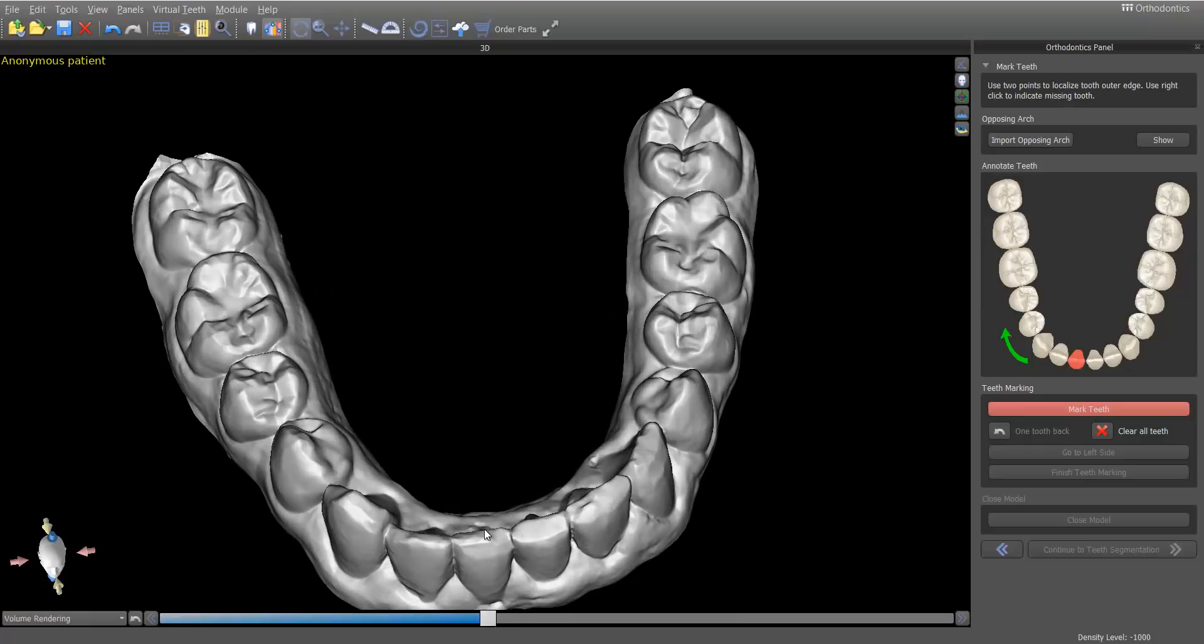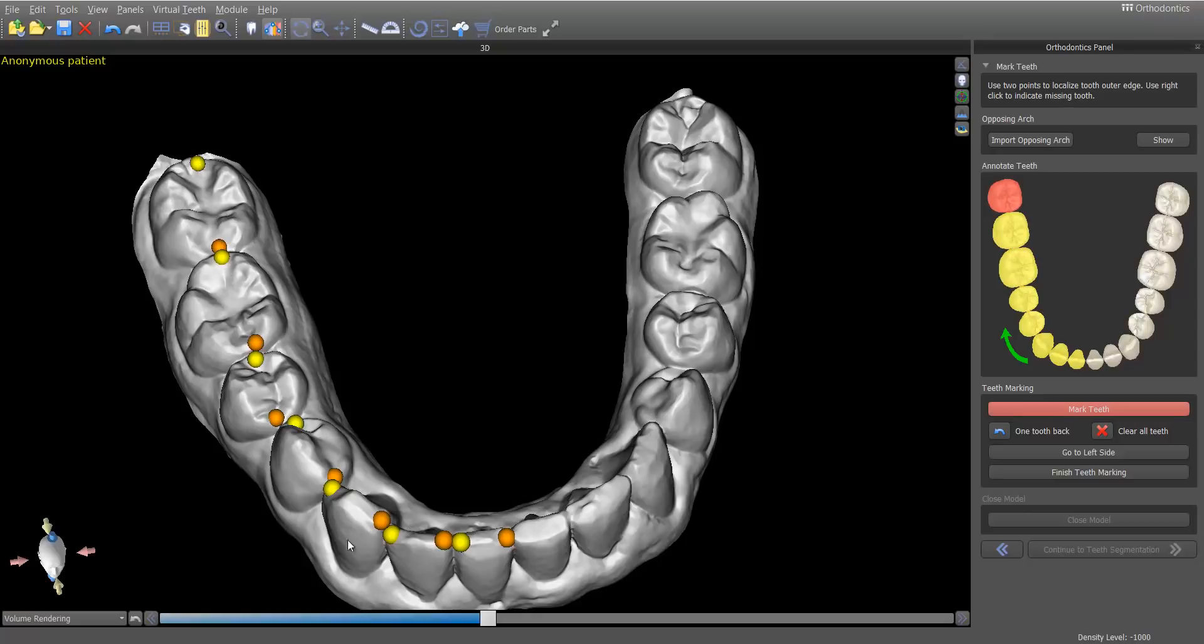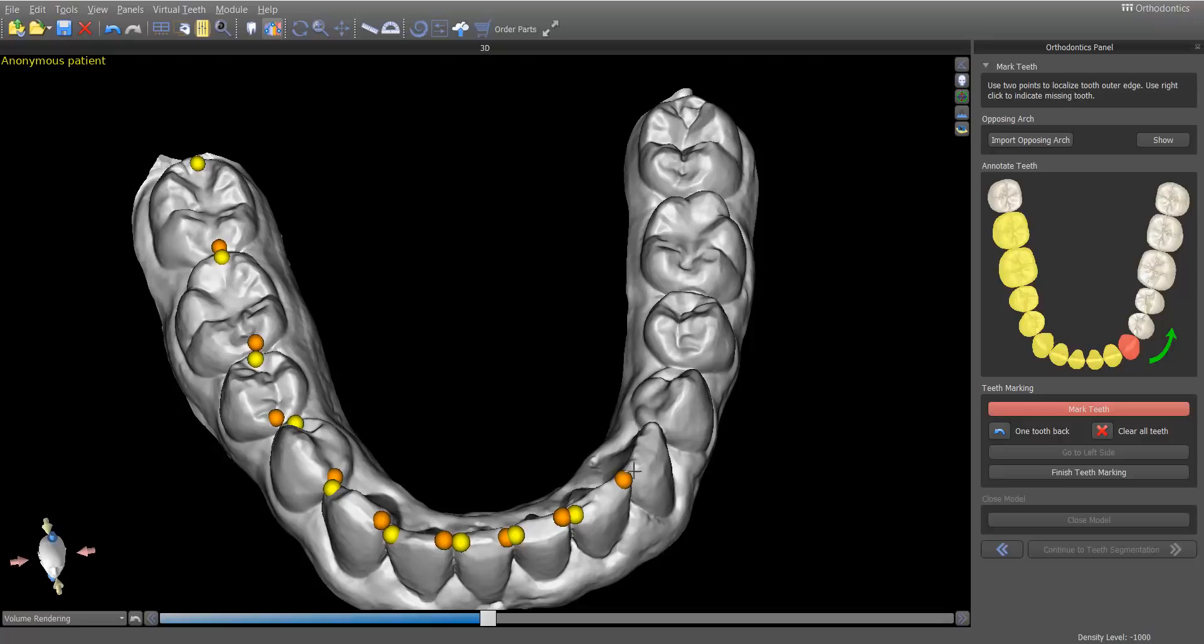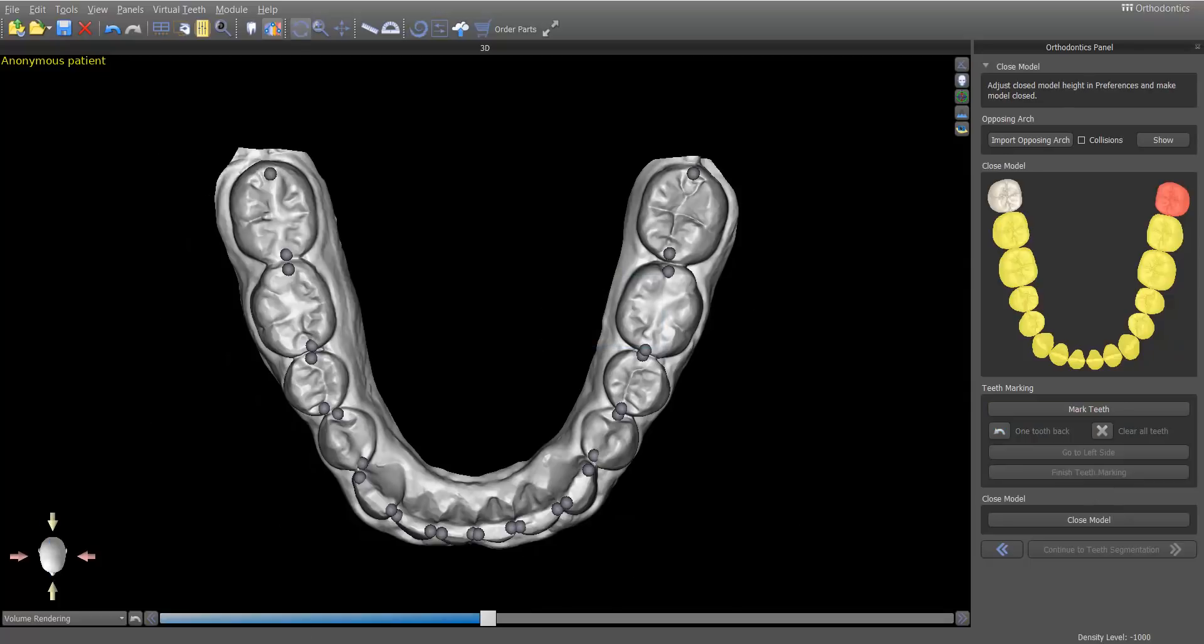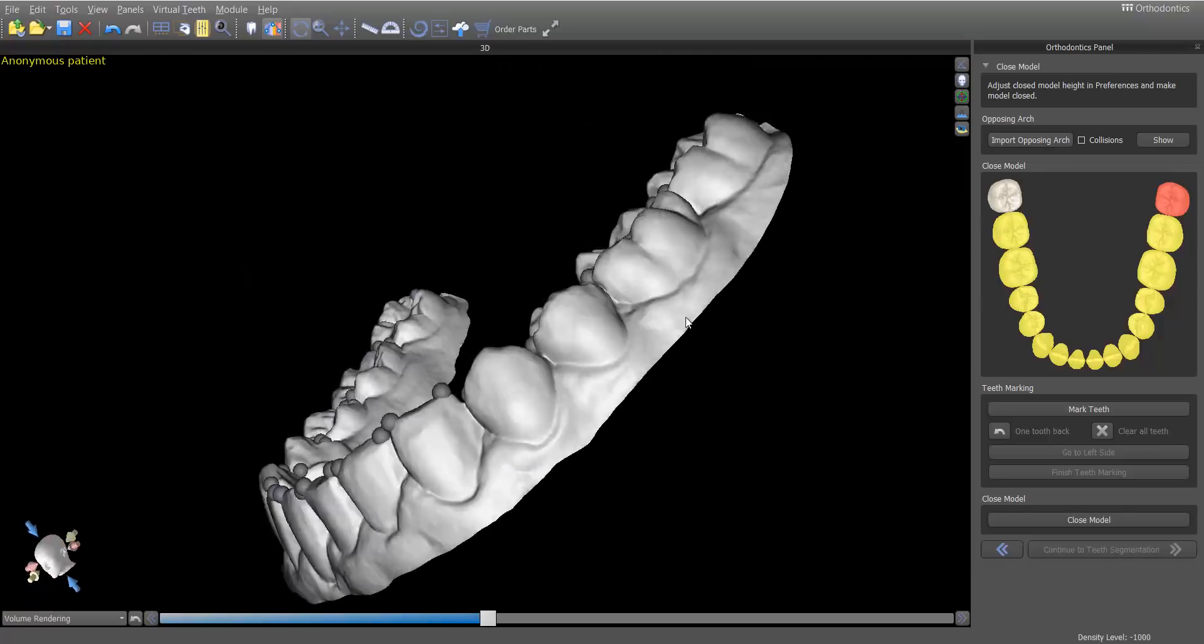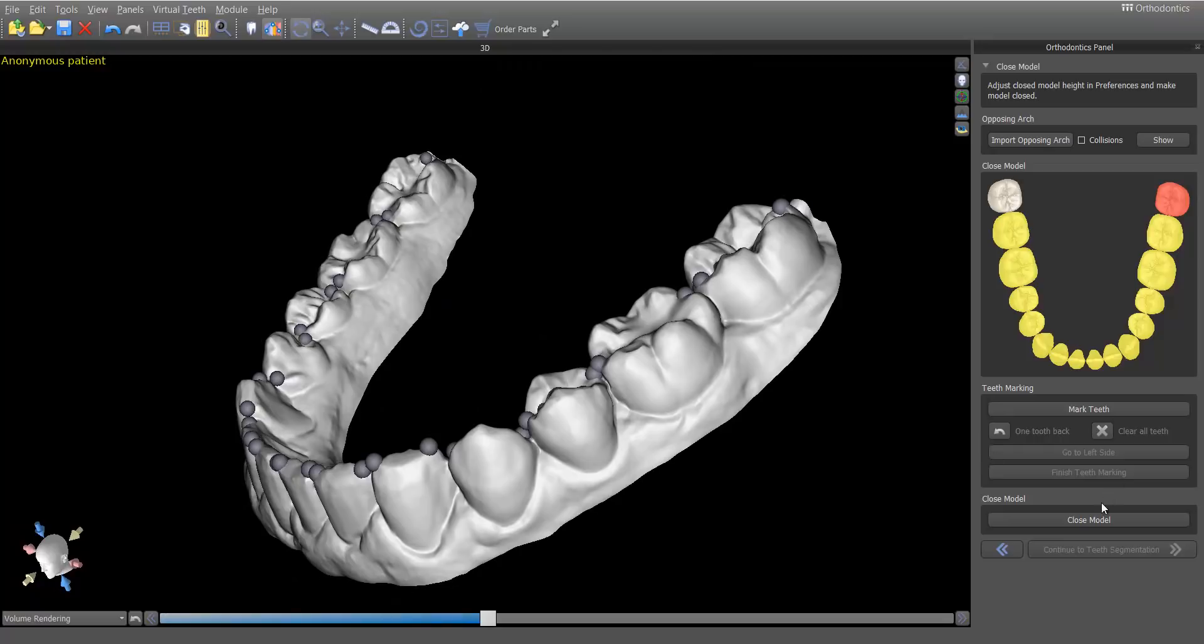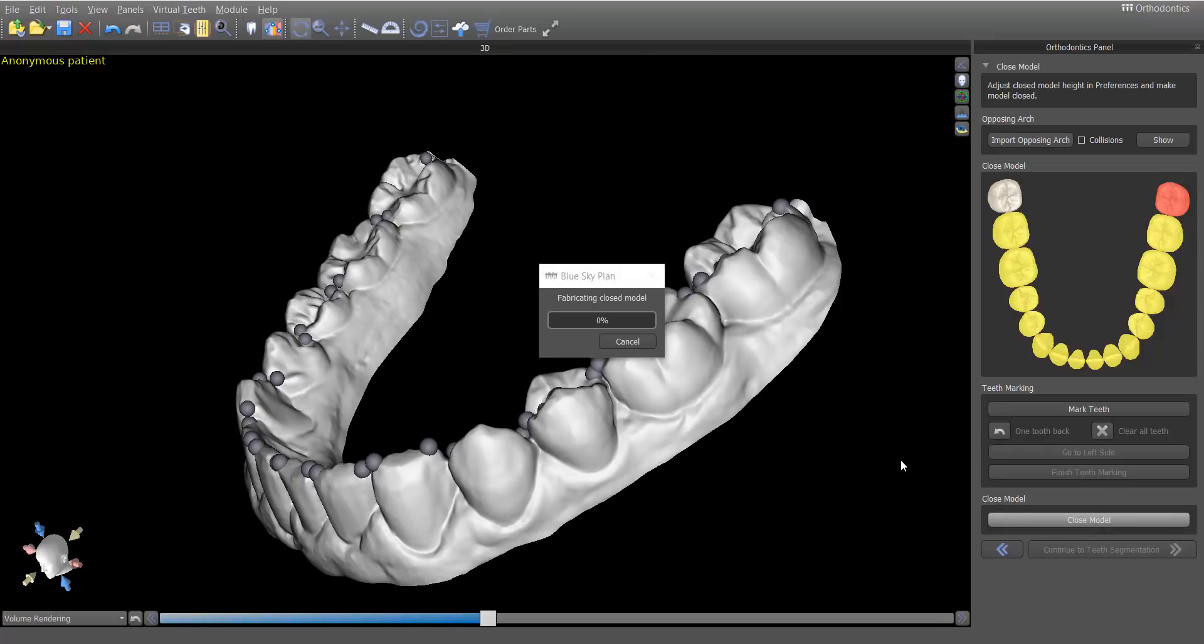Let's quickly mark the teeth. I'm holding the shift button, and I am left-clicking. If I'm ever missing a tooth, I can right-click. It's a little blue. Let's just go one tooth back. And I'm just marking the mesial and distal. Stay in the middle of the tooth. Don't get down deep along the gingiva. I've seen too many people try to do that, get fancy with their placement, and it only messes things up. These teeth are pretty well aligned rotation-wise. I hit Finish Marking Teeth. It sets the arch axis. And now, I'm going to click Close Model. Normally, I've always avoided that, because it's a hollow model, but I've usually based it outside of Blue Sky Plan. I'm going to hit Close Model.